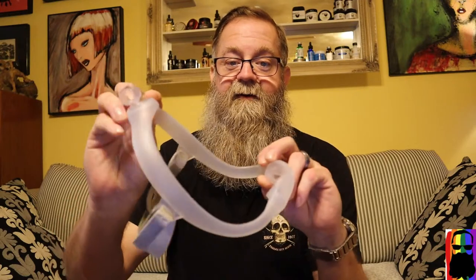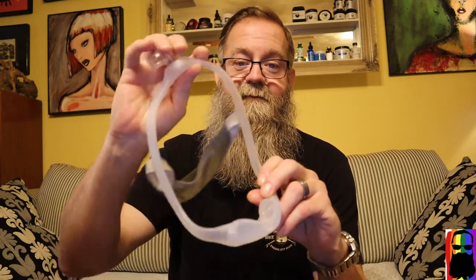I had a friend that also uses CPAP, and I knew he had a mask where the hose connected to the top of the head area. So I asked him to send me a picture of what he used, and he sent it to me. I thought it was a great mask, so I ordered it. Sure enough, after I used it, it did not affect my mustache at all — the same way I went to sleep is the same way my mustache looked when I woke up.